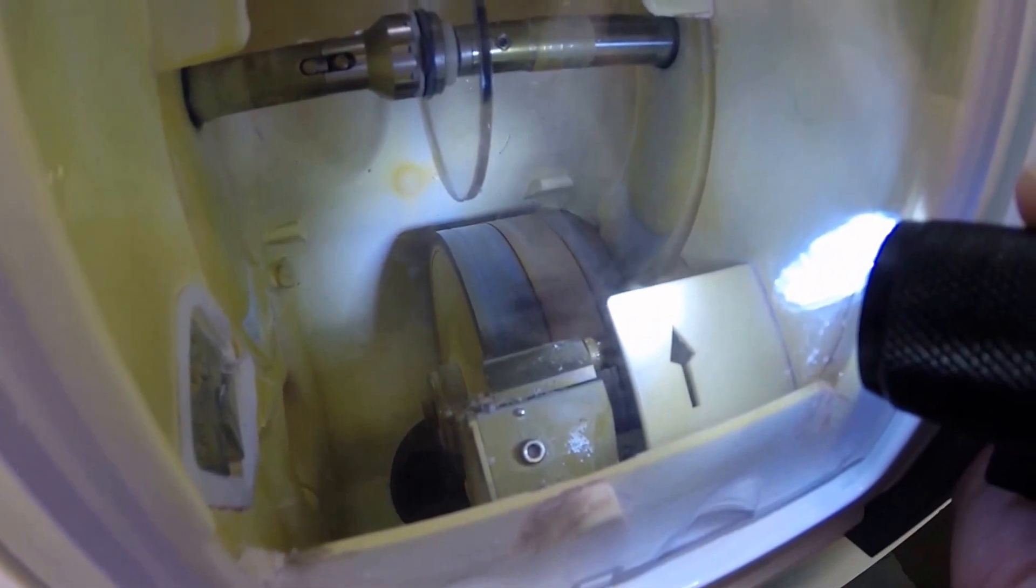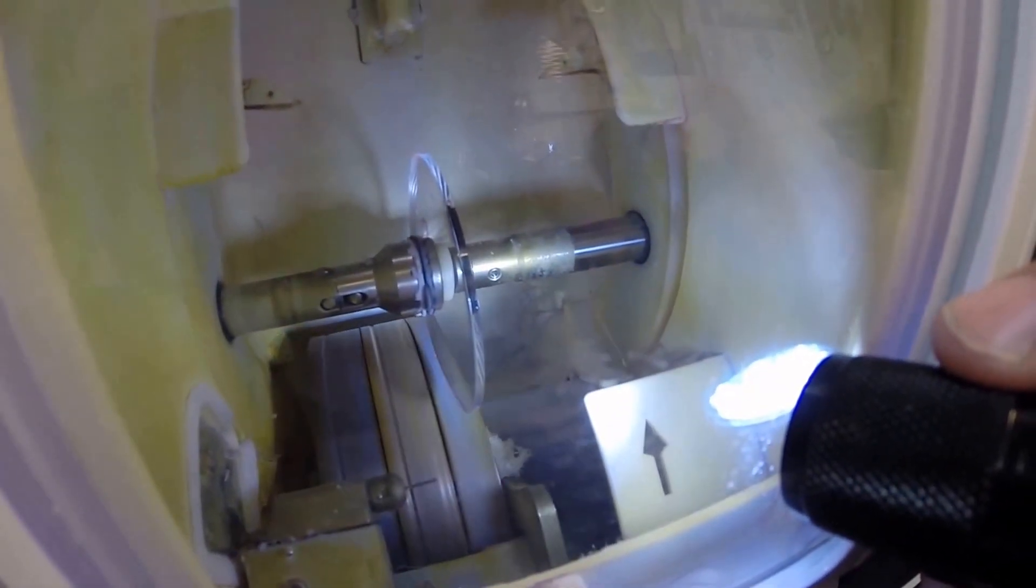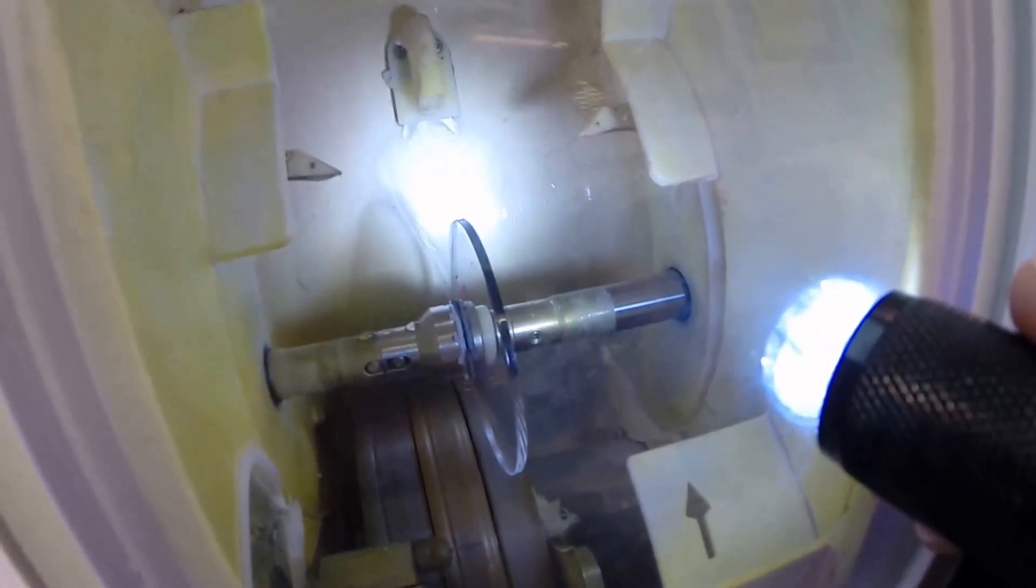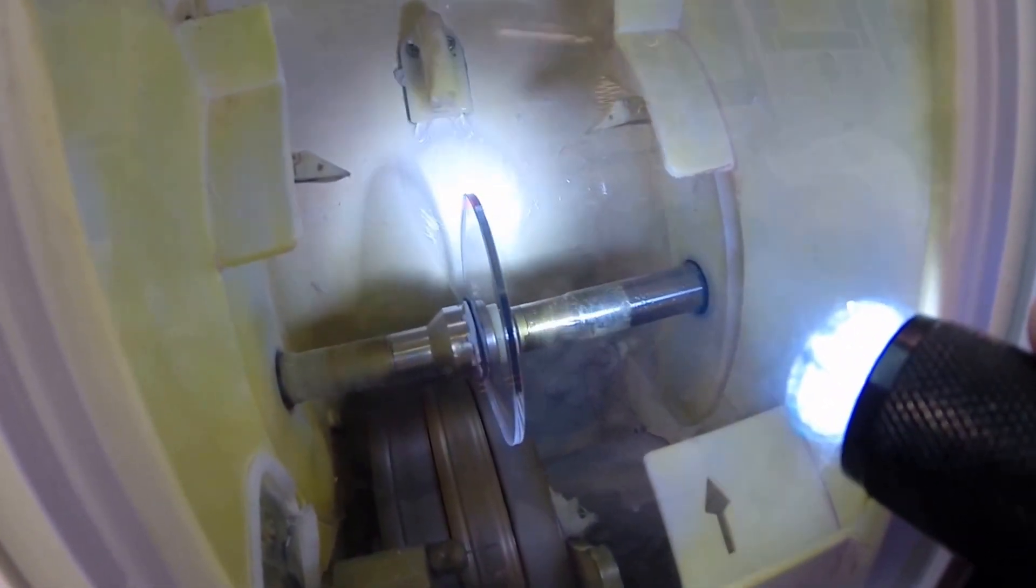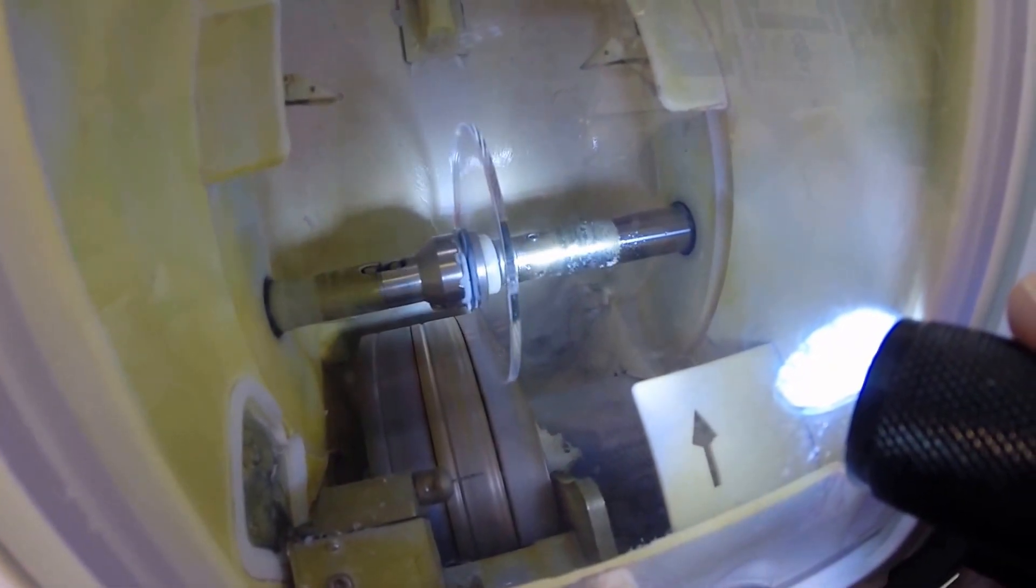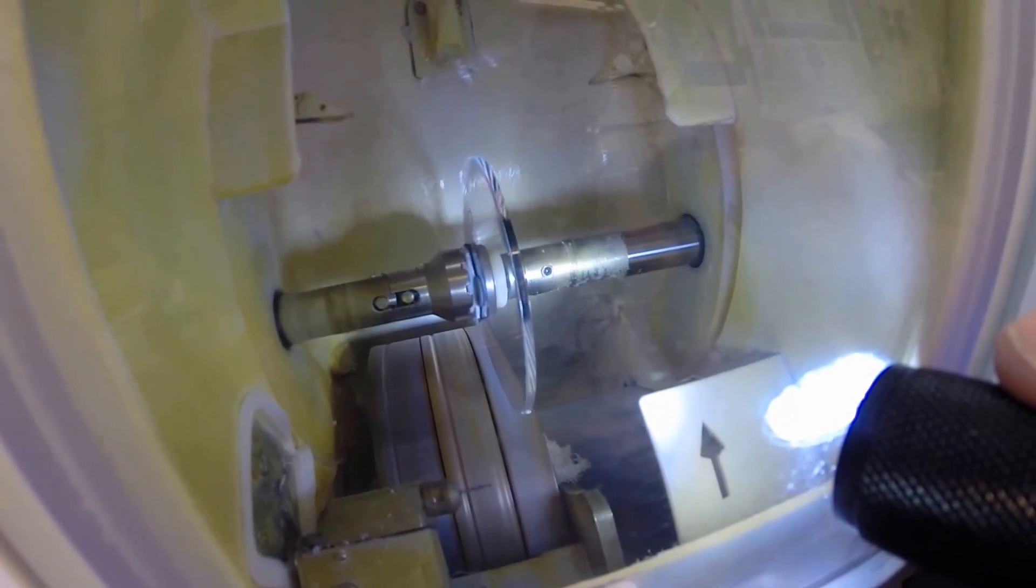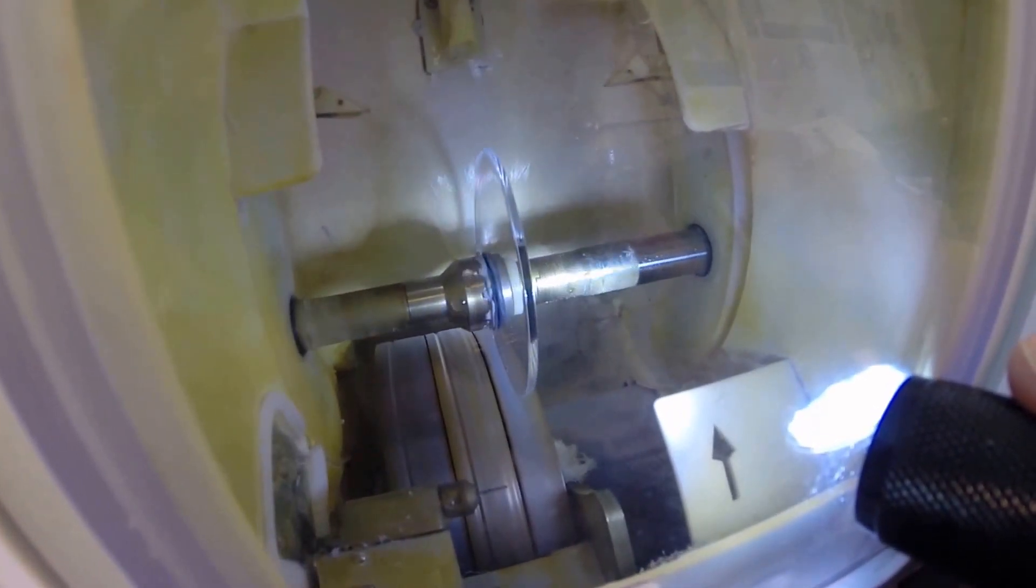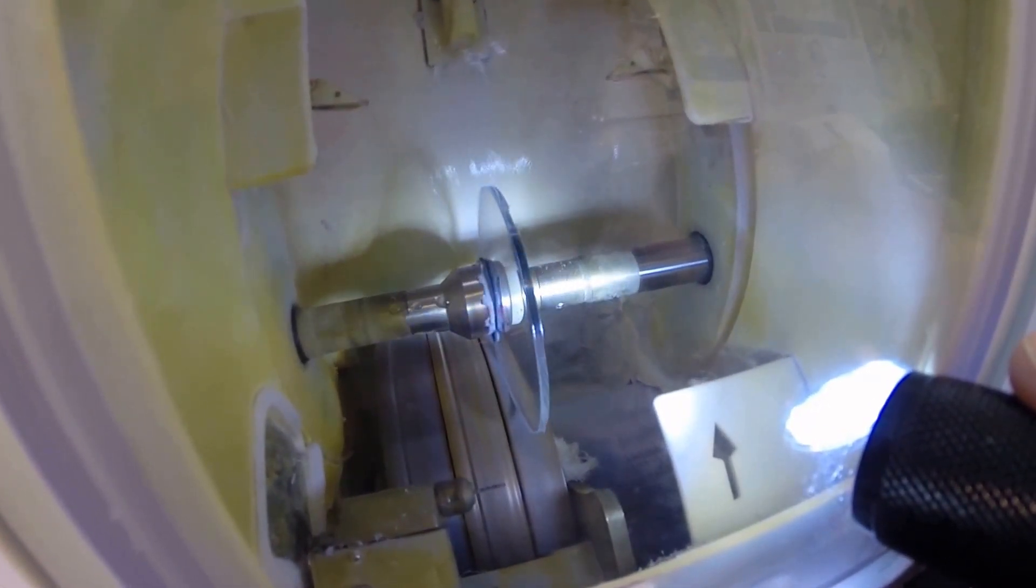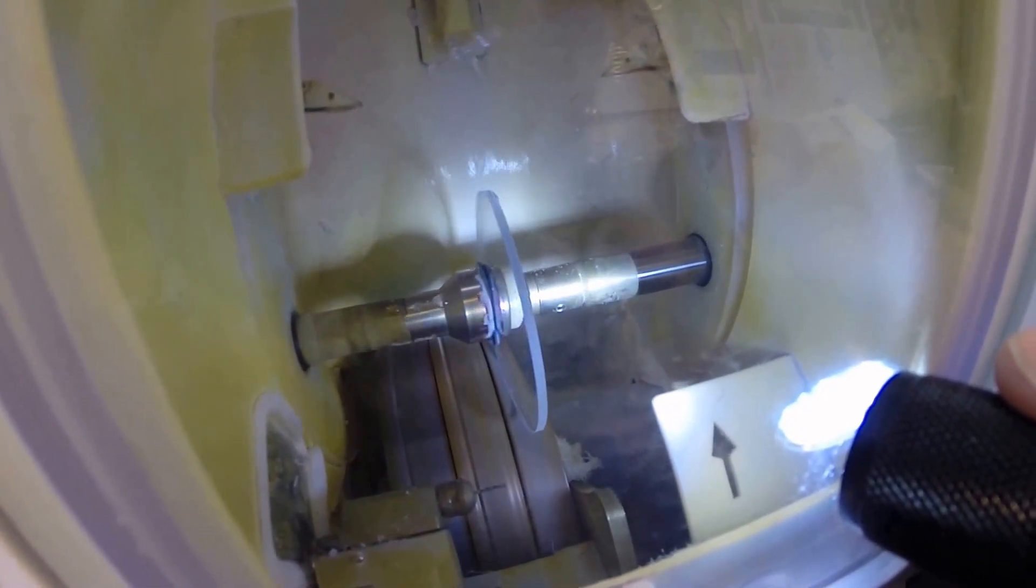Now the cutting wheel is starting to spin. It's going to move into place and the lens will drop down onto the cutting wheel. If you see light flickering in the background, that's just water to catch the optical sawdust as it flies off the cutting wheel. Polycarbonate lenses cut dry, while plastic, high index plastic, and trivex cut wet. Water will splash onto the lens for the last 20 seconds of the cutting cycle.